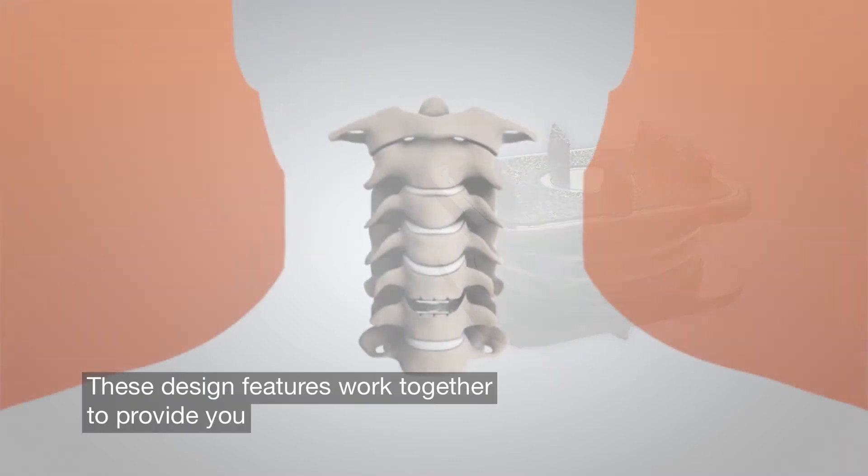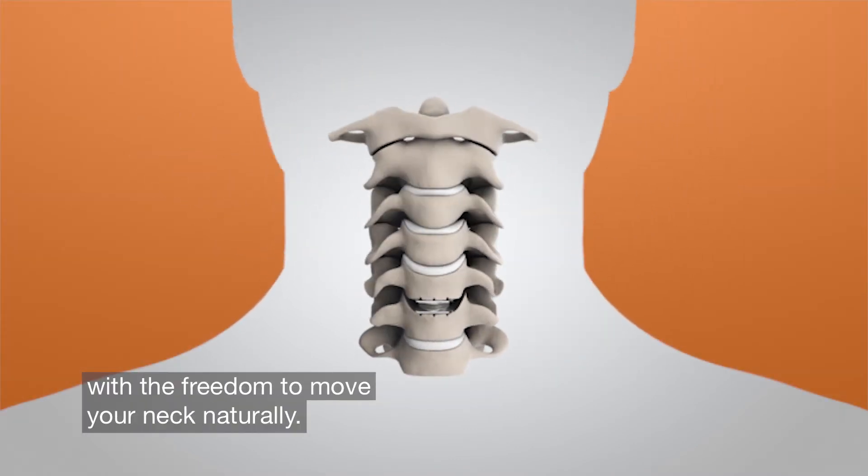These design features work together to provide you with the freedom to move your neck naturally.